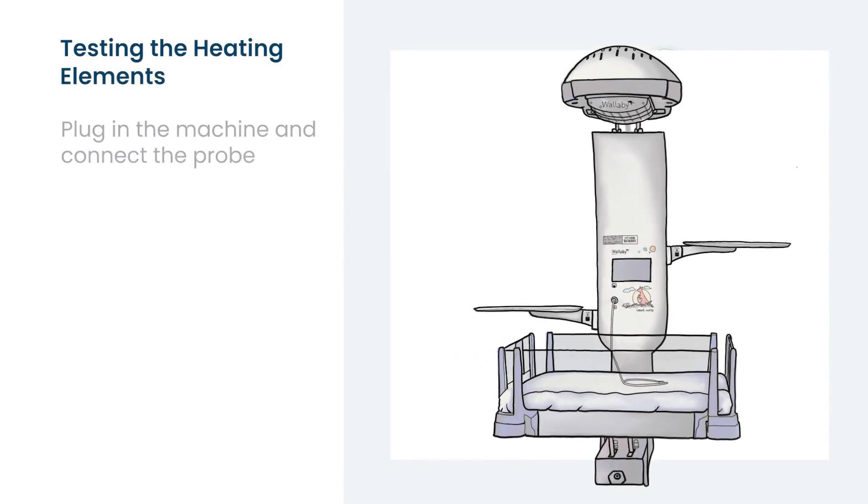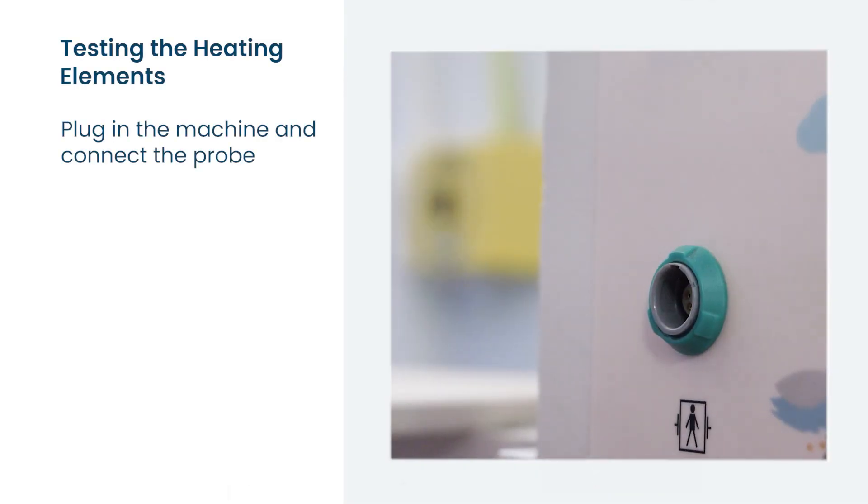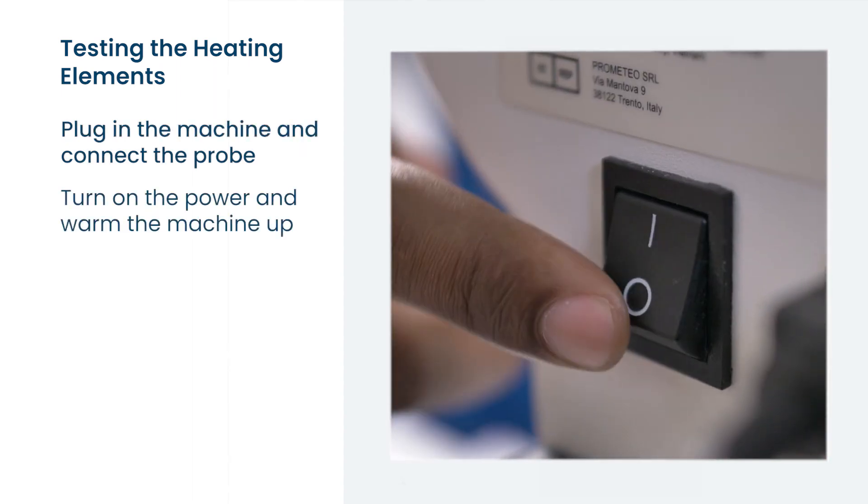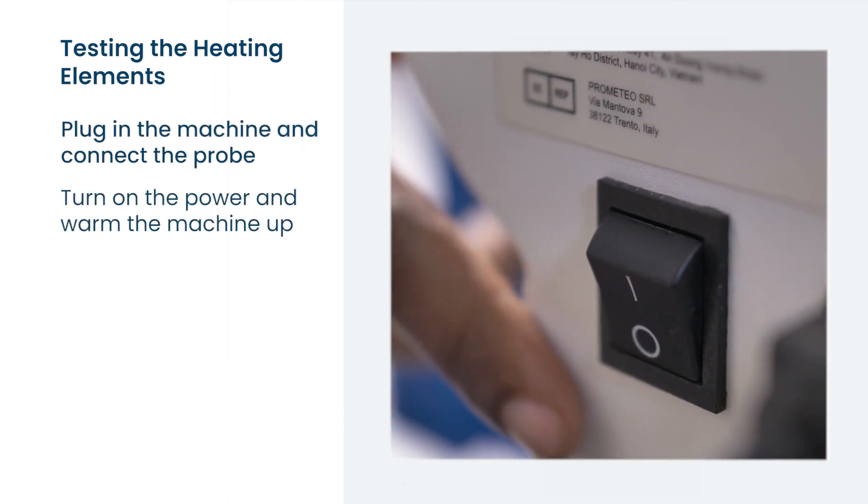To do this, plug in the machine, connect the temperature probe, turn the power switch on and let the machine warm up for a minute.